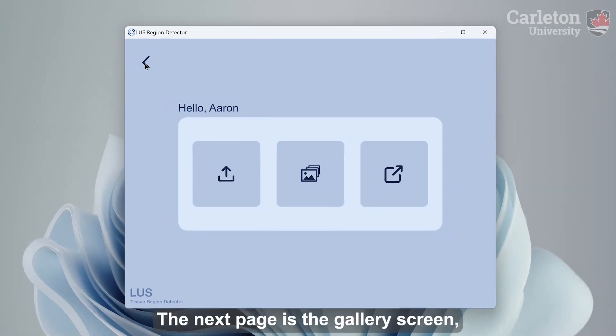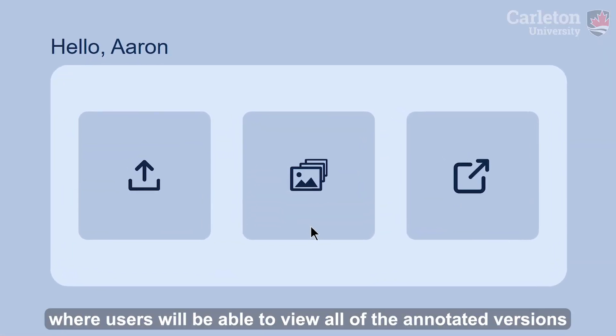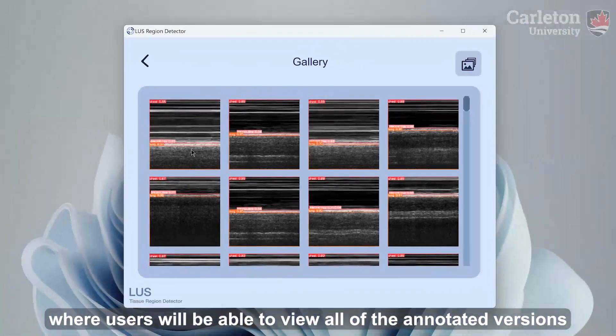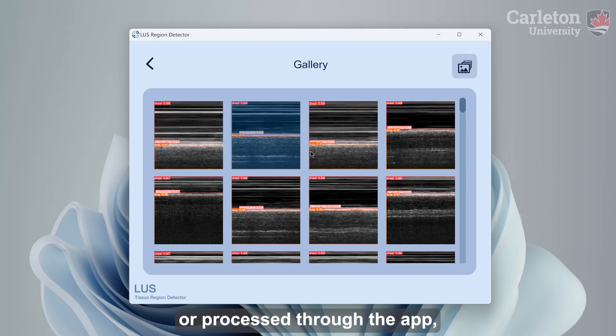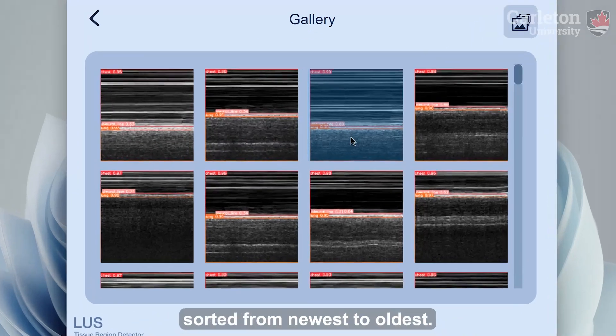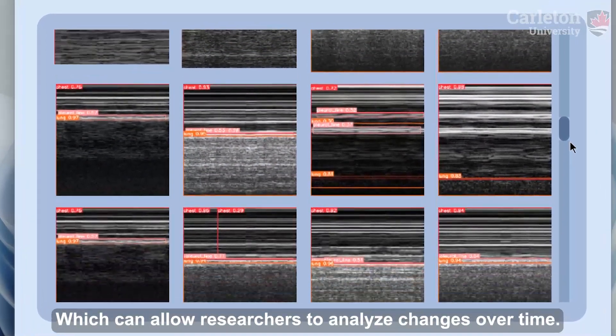The next page is the gallery screen, where users will be able to view all of the annotated versions of images that they have previously uploaded and processed within the app, sorted from newest to oldest, which can allow researchers to analyze changes over time.